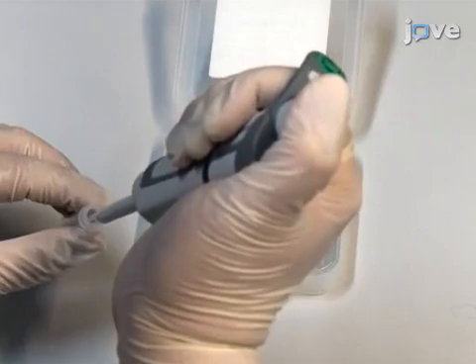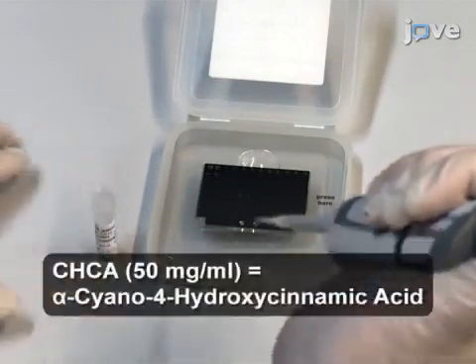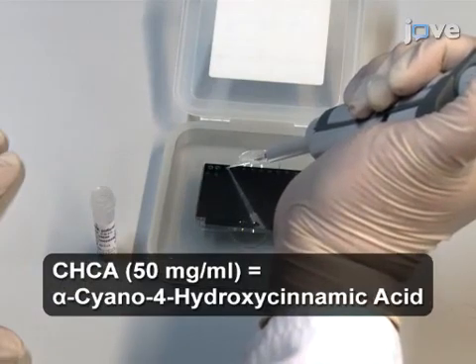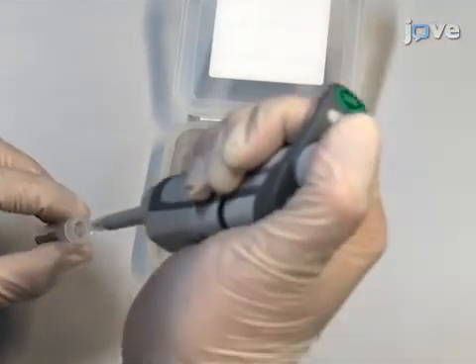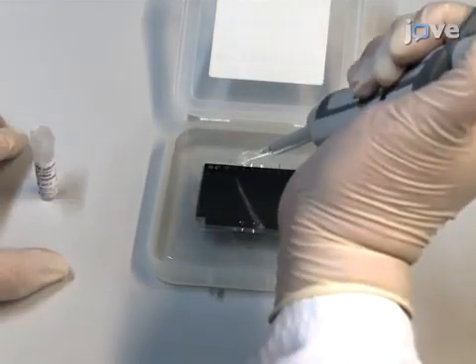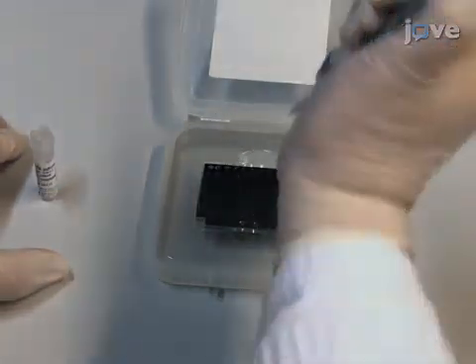Overlay the spot with one microliter of matrix solution containing 50 mg per milliliter of CHCA in an organic solvent composed of 50% acetonitrile, 2.5% trifluoroacetic acid, and 47.5% water. Let the smear and overlay dry.